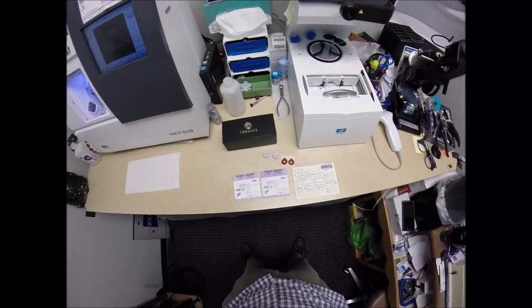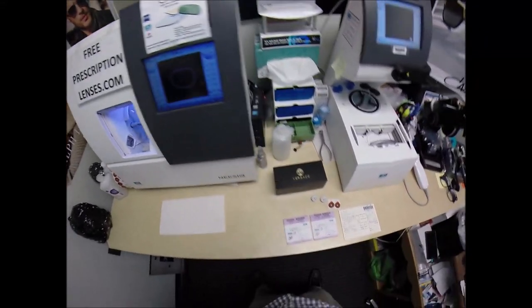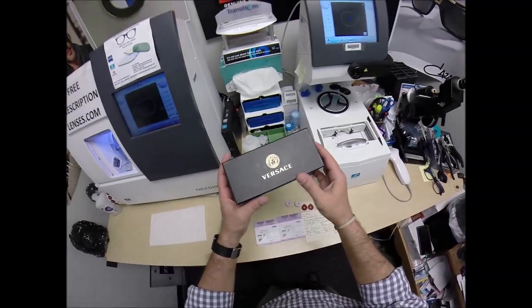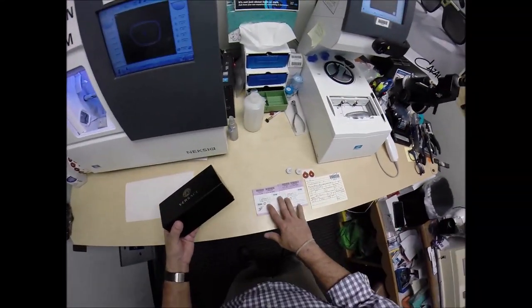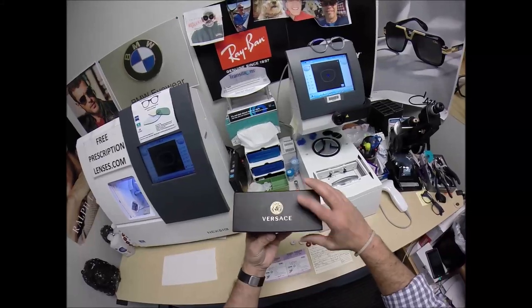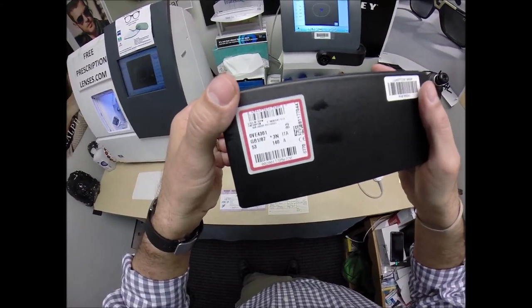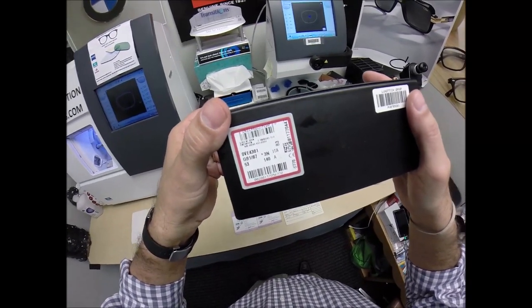Brian in Lake Charles, Louisiana. See more better with freeprescriptionlenses.com. But call me Mo — Mo better — because I'm having you see Mo better. Definitely looking Mo better. Let me show everyone how I bring that love and feeling back to glasses when I cut your prescription lenses with anti-glare for the Versace 4361.